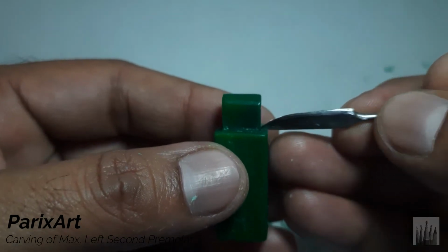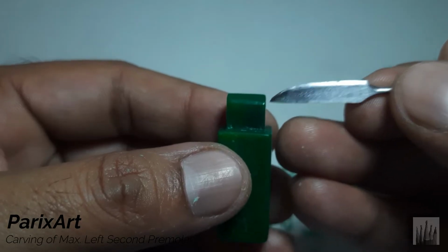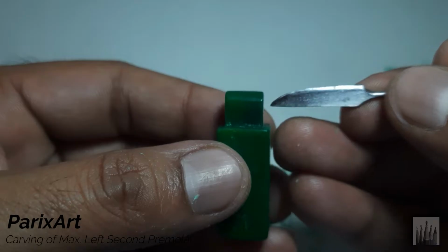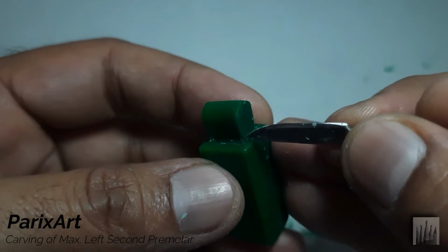And the lingual outline also starts with a long curvature till the cusp tip, which also lies within the trunk dimensions. The crest of the curvature lies in the middle, same as the first premolar. So first we'll mark the notches.